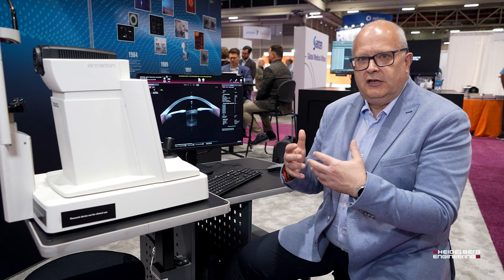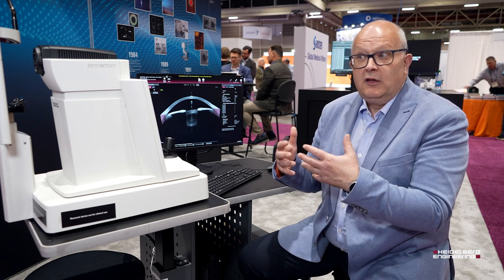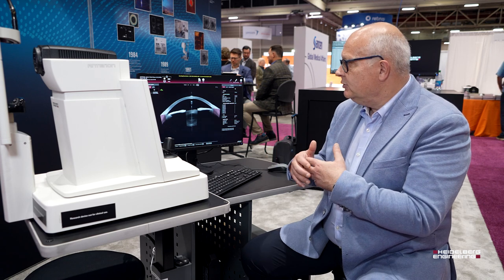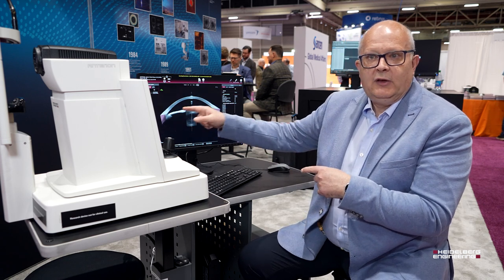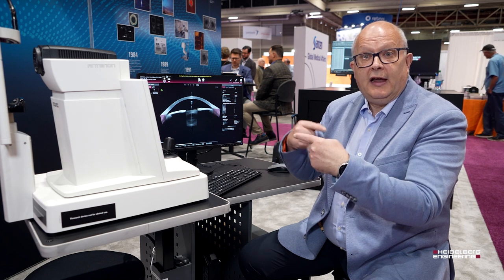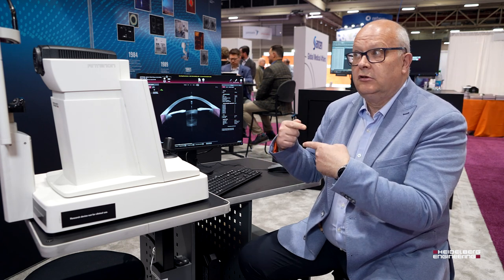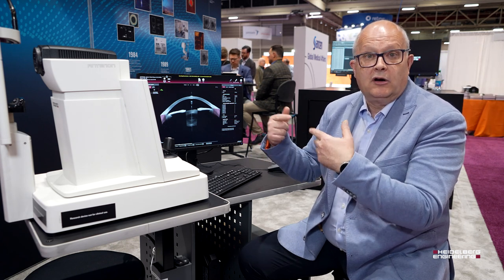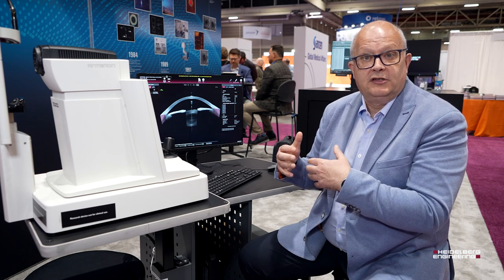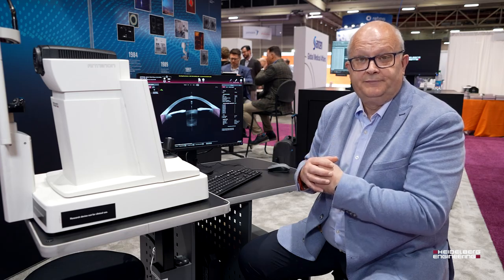Anterion has the ability to provide segmentation, identify the key anatomy of the anterior segment, and we can use the anatomy to define curvature, which we can then calculate various maps that show corneal power, corneal thickness, and various other parameters that support the surgeon to make the correct clinical decisions.